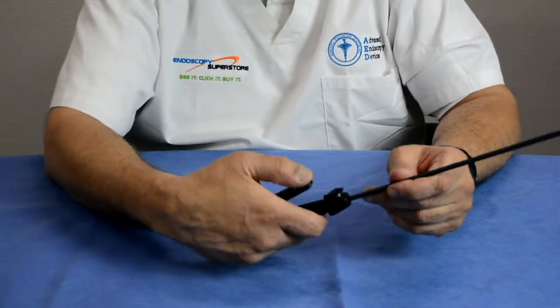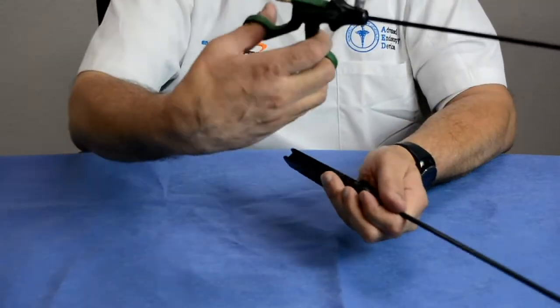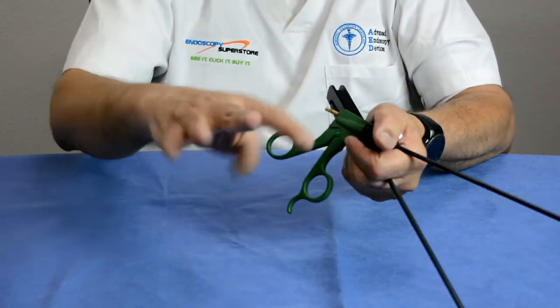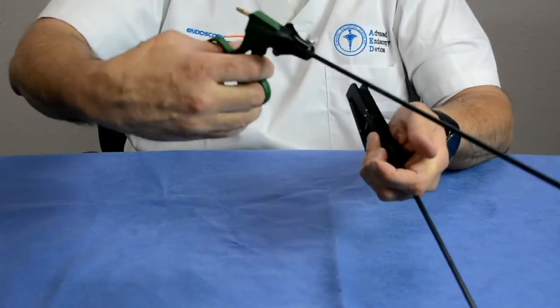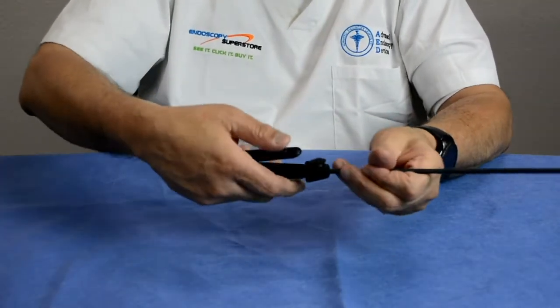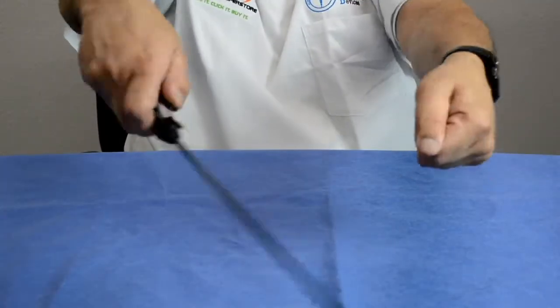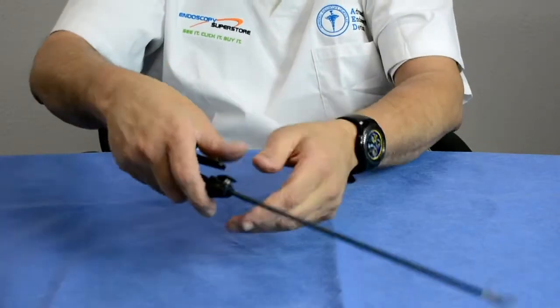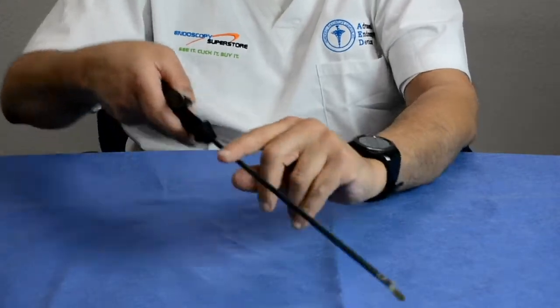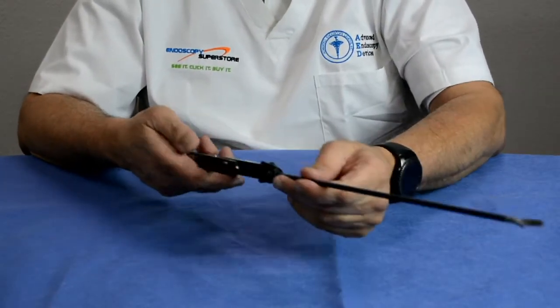Doctors working with many different-sized patients and doing five or six procedures a day experienced a lot of fatigue — finger pain, joint pain, and wrist pain — from using traditional ring-style handles. So companies developed axial handle instruments. Instead of having to rotate the wrist awkwardly, the doctor could work more naturally with less fatigue. These axial instruments came as a single unit, were rotatable, had a flush port, could be locked, and were available in many different jaw patterns.